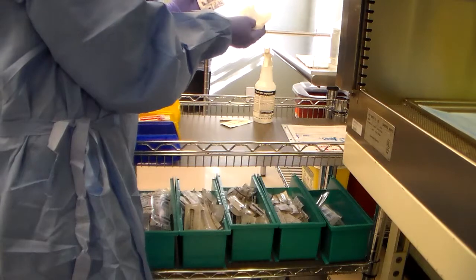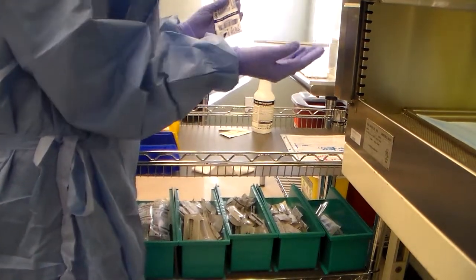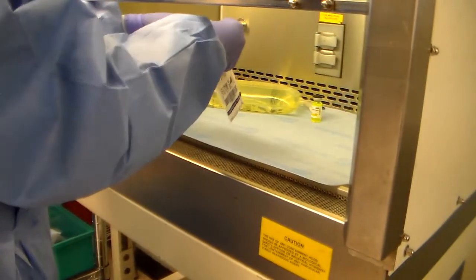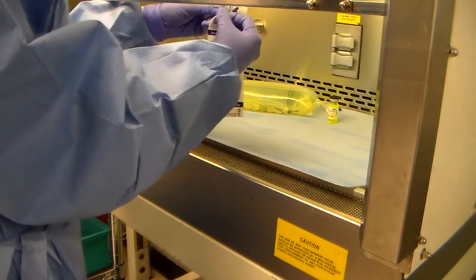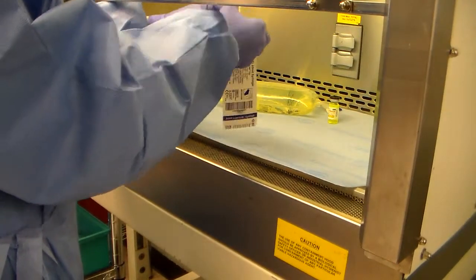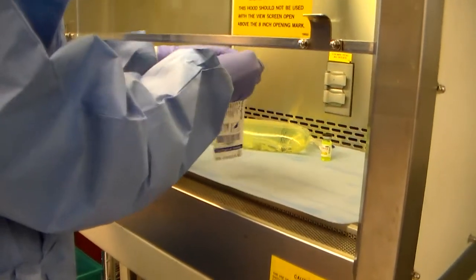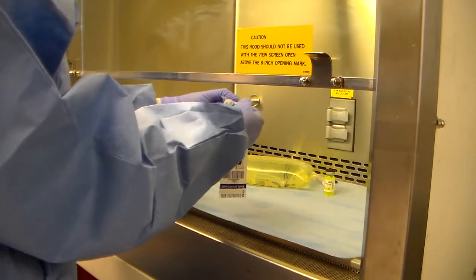Again, notice that I'm putting this towel down each time that I'm getting ready to enter the hood. So from this point, since I'm not allowed to have paper products in the hood, I'm going to go ahead and open my syringe. This time, my syringe, I'm going to open it towards the airflow.